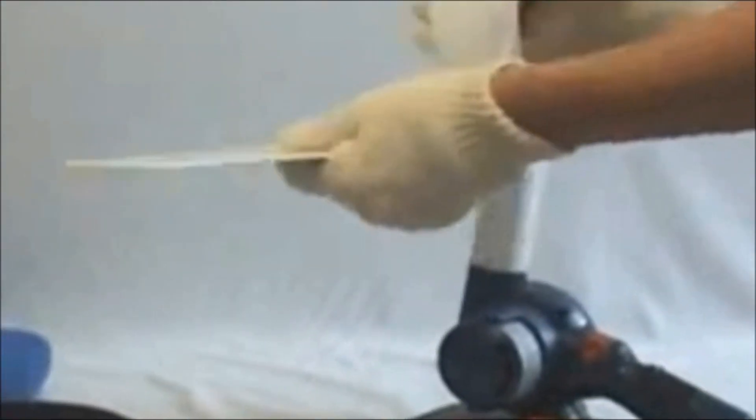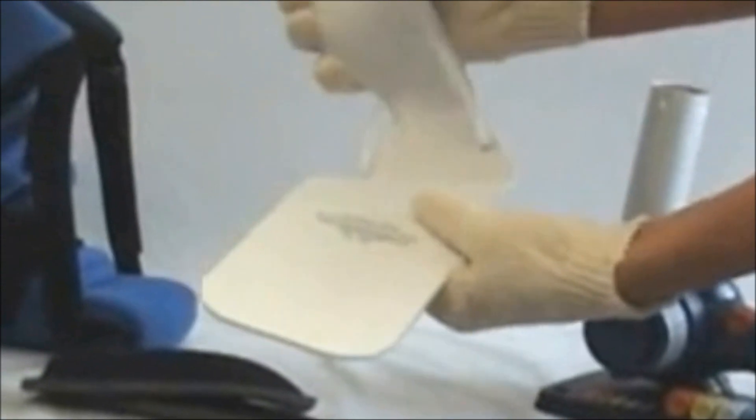So heat it again, and then turn it. You're going to make the boot fit the bottom of the patient's sole. Never try to make the patient fit the device. That may be true in orthopedics, but our patients are restorative, totally different needs, and totally different devices are appropriate.